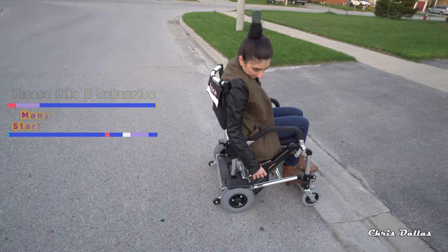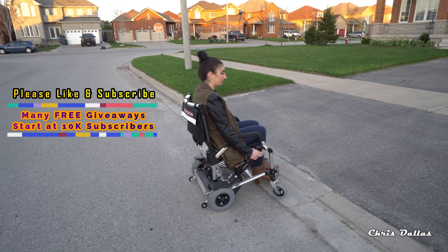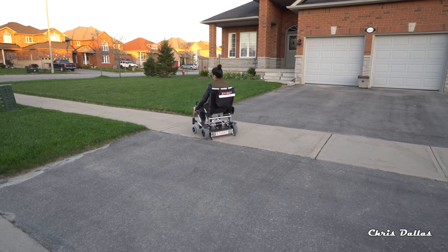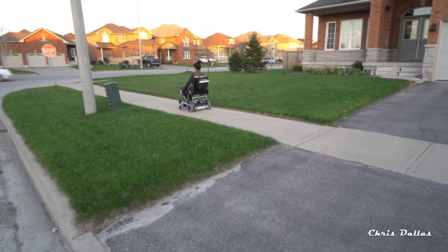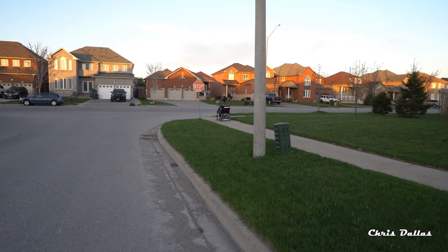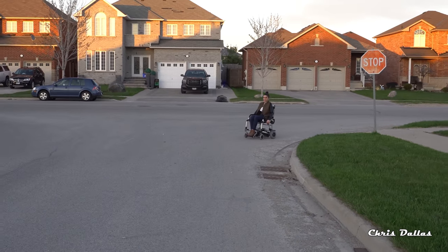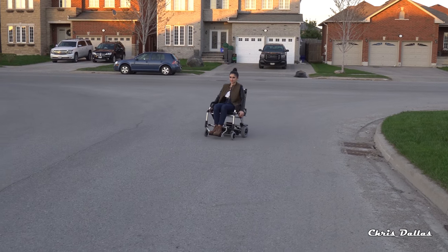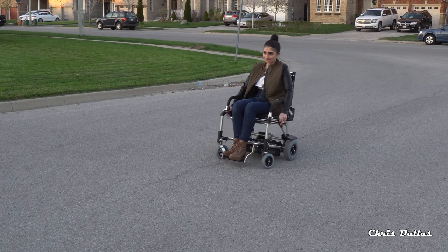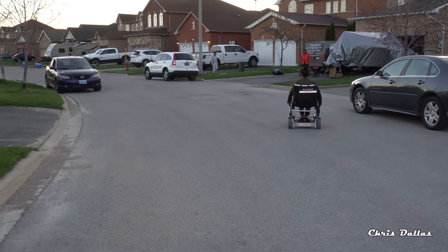Now she's going to go backwards because she's in reverse. Now back on medium. She's on medium speed — go as fast as you can on medium. There she goes. It's a very, very good speed, the medium speed. You can come down the ramp and around. This is the medium speed — go full blast on medium speed. Even faster, actually, on the medium speed.